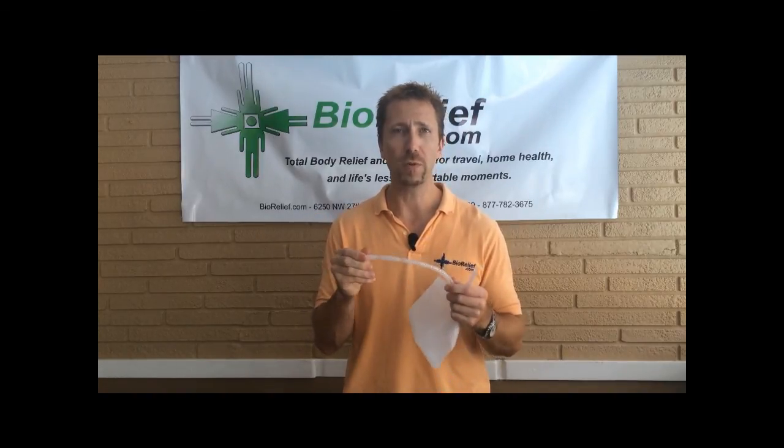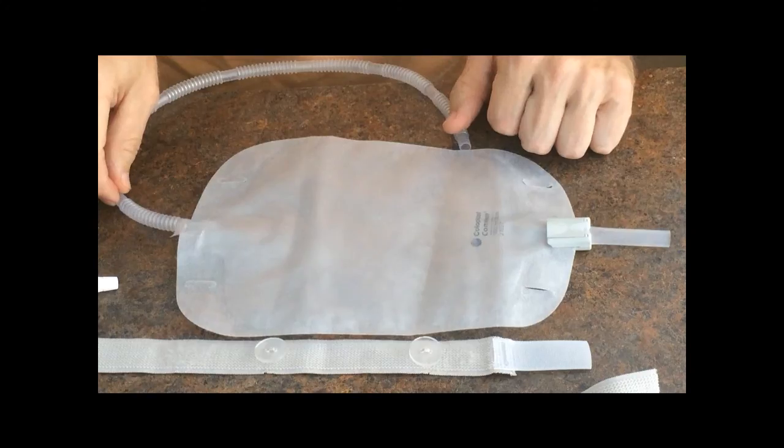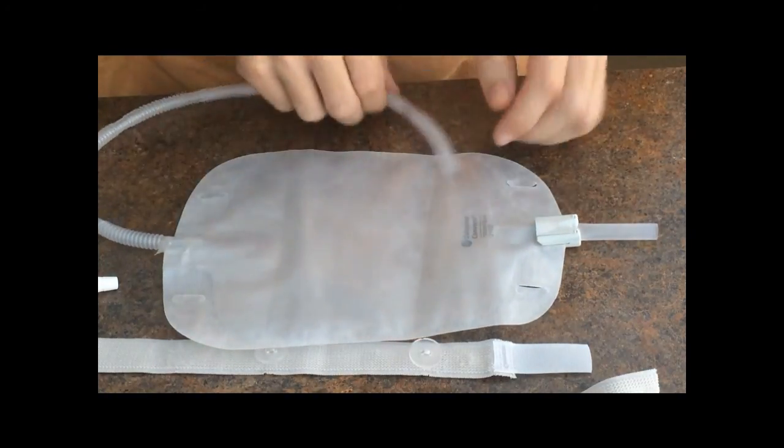That was happening and was retaining urine in the tubing or collapsing the catheter. That will help you address those issues. Now, on trimming the tubing to a proper length and incorporating the leg bag straps onto the leg bag — I want to address how the straps are incorporated into the leg bag and how to trim the tubing.